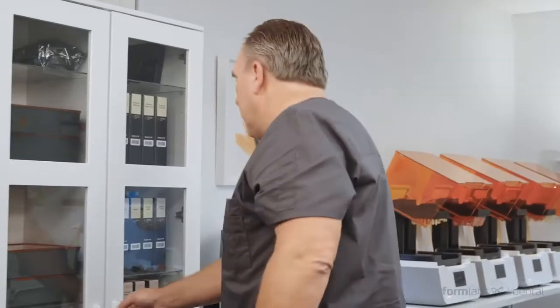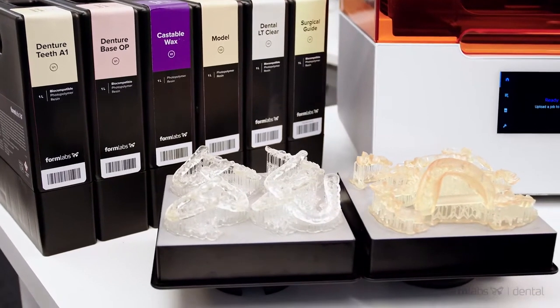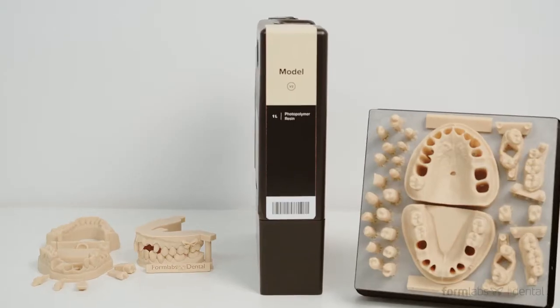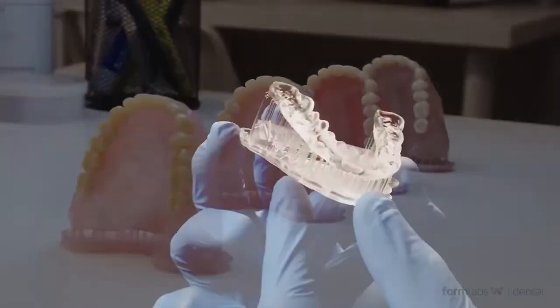And with a vast and always-expanding library of materials finely tuned for dental-specific applications, including many biocompatible resins, you'll be able to print anything, from models to directly printed products like full dentures and surgical guides.